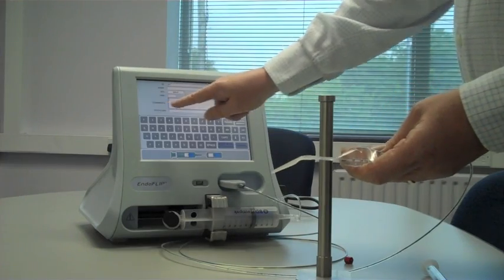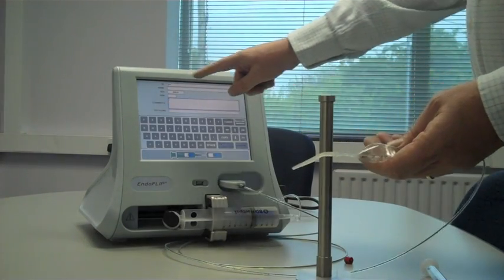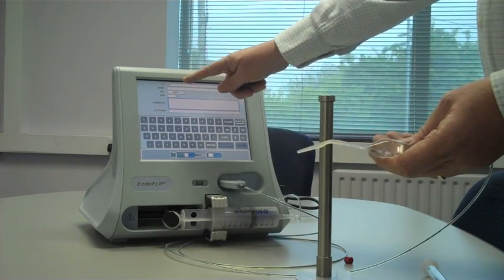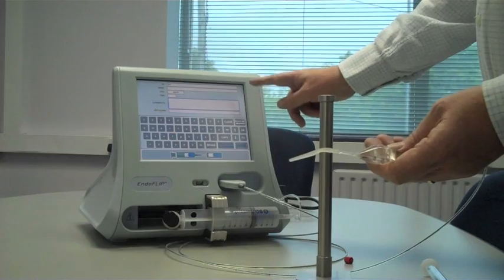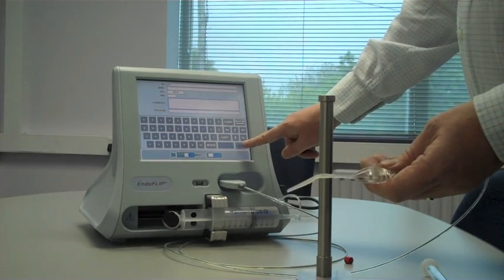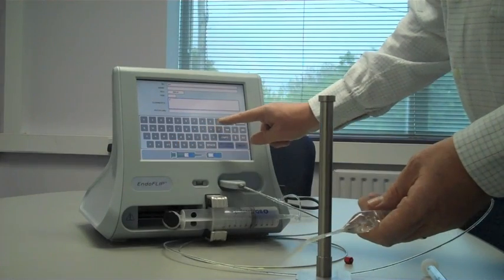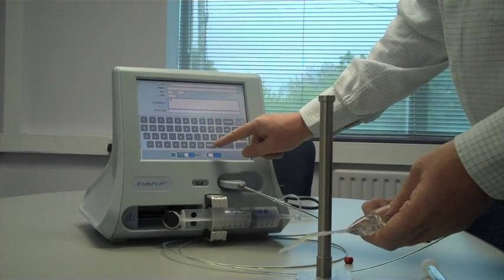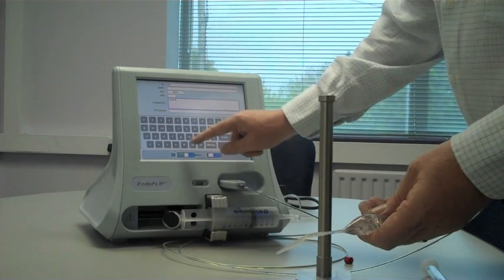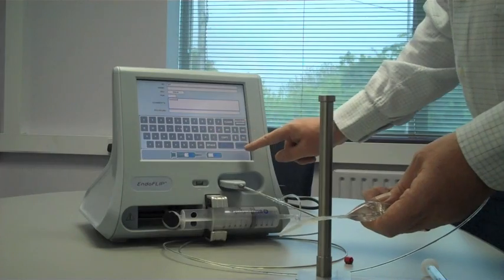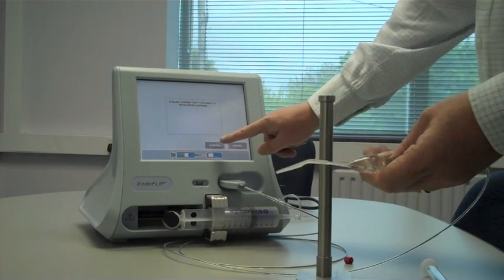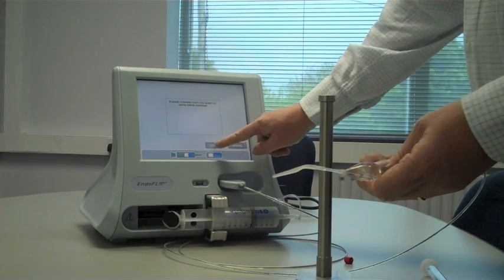You can, however, change patient details. And whereas the ID will always be the same, you can fill in name, sex, age, and comments. I'll just put in a comment here. Save and continue. Hit Confirm to save the changes.